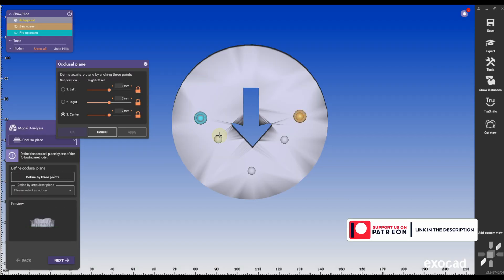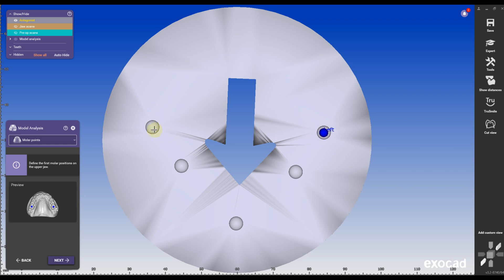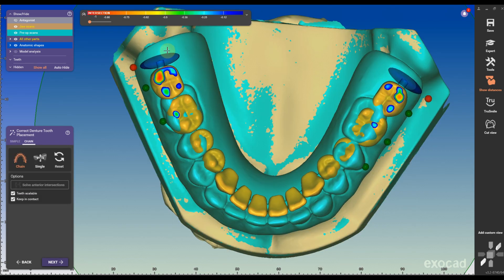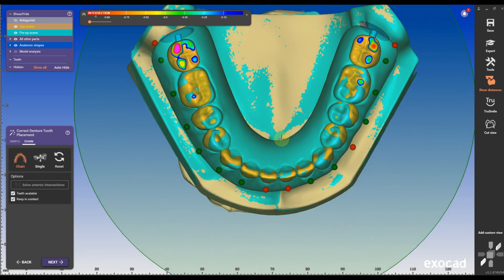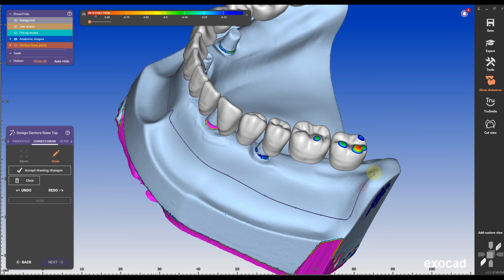The most critical indication is that you need at least a prosthetic space of 12 to 15 mm. While it seems a lot, it's actually not that much when we consider that screw-retained all-on-x cases require at least 12 mm as well. But we as dental technicians have found workarounds with internal bars, for example, to compensate for clinical problems.